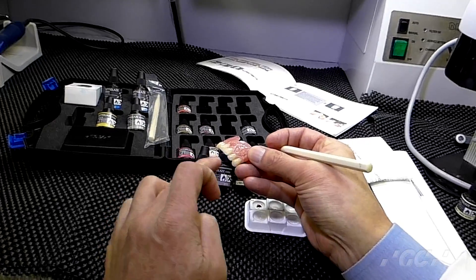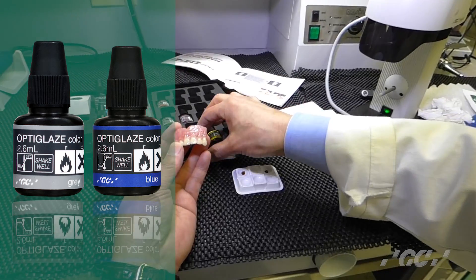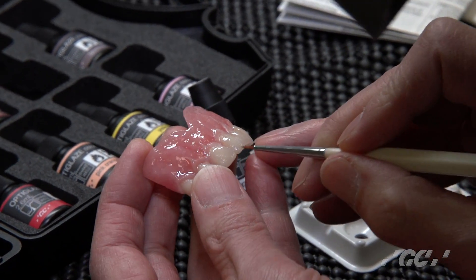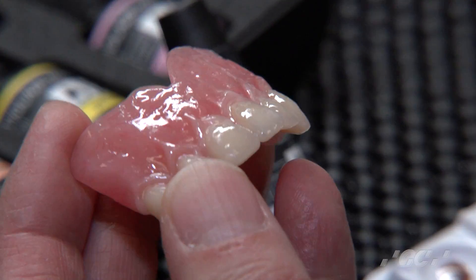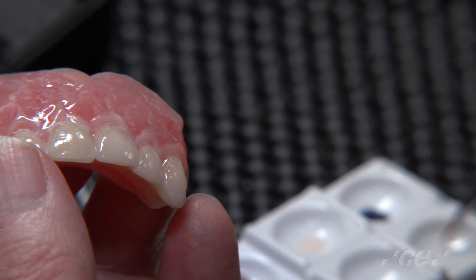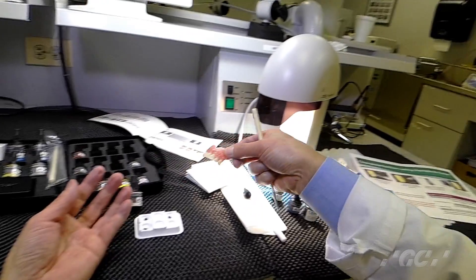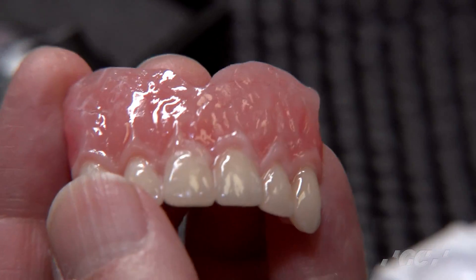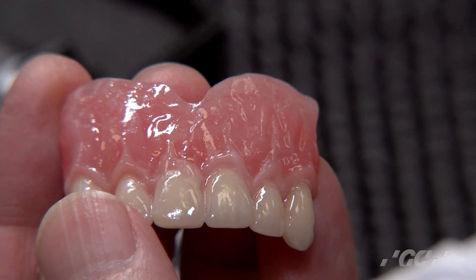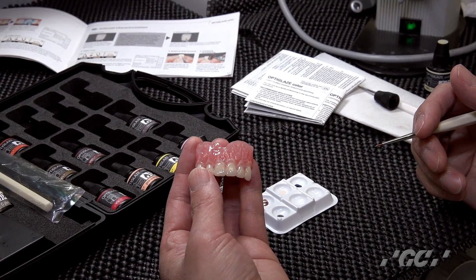If you want more translucent looks, use blue and gray. I like to have a little bit more gray at the corners. Dilute if it's too strong. Then temporarily tack cure it. If you want to add more color, continue — don't apply everything together, because the color can run and it becomes very hard to control.